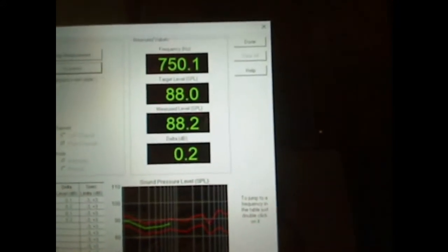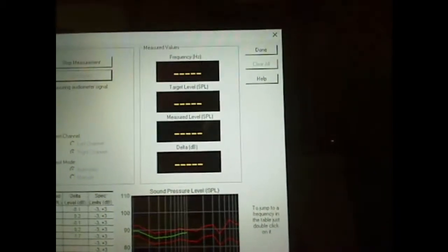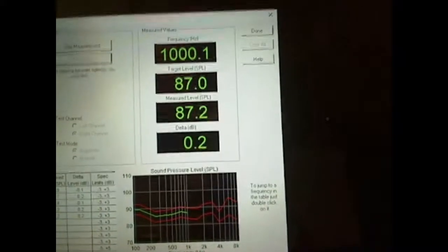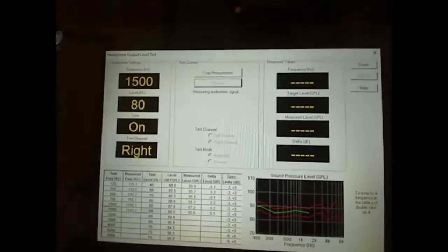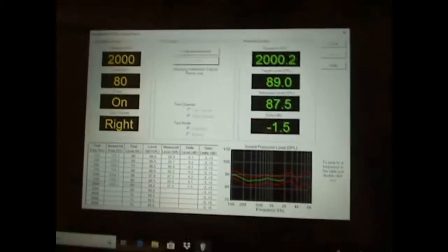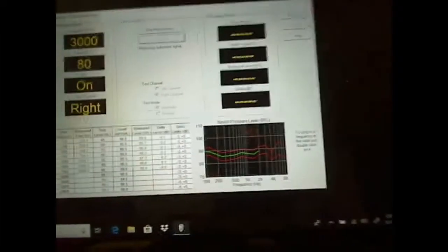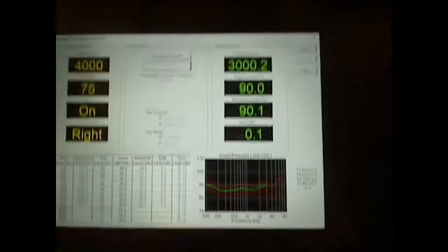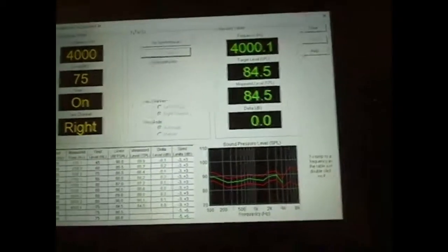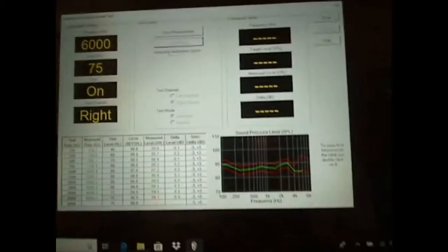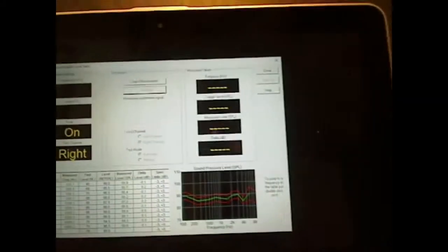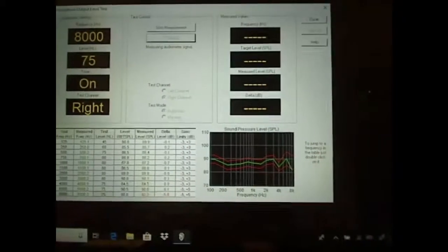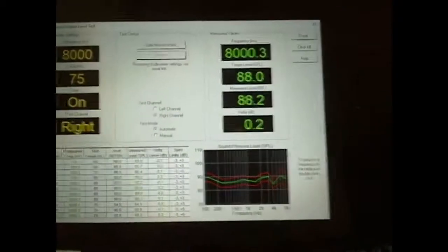That's 1.7 off and you see it makes an adjustment. I'm going to just leave this down so you can have a good look at it. There's 1.7 is the original one. I come back over and adjusted back to 2 tenths of a dB. And that's how simple it is to calibrate that audiometer. It's going to run through the right headphone. Now we're doing everything that that audiometer can do. I could have went back in and selected out a different pattern and only done the 500 to 8000 frequencies. But we think if you're going to do a calibration, you might as well do the thing right. That one was really out of calibration, which comes up in red and it adjusted it and brings it back in and it's done.